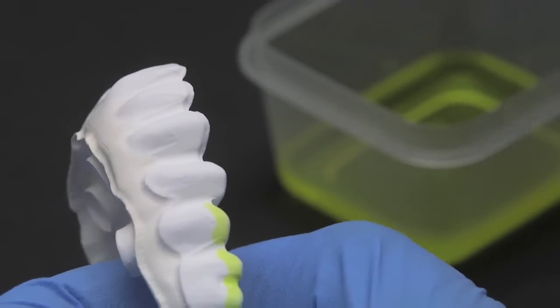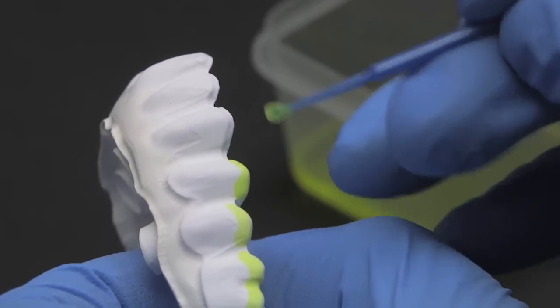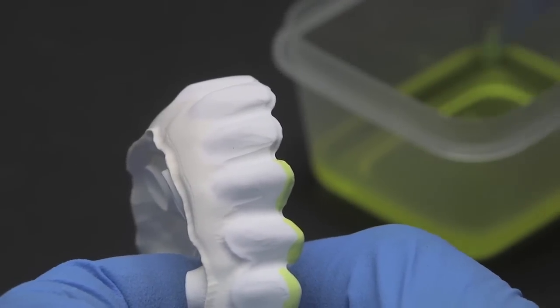Once the tissue shading has been completed, it is time to apply the incisal shading liquid to the incisal areas of the bridge.